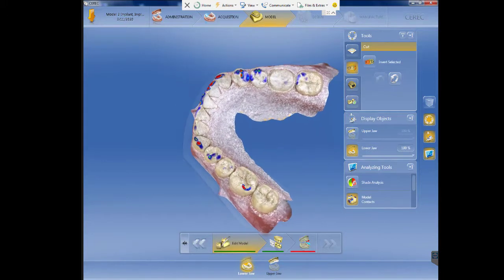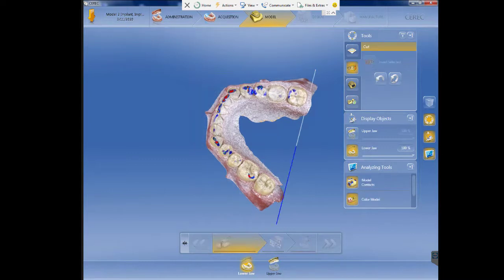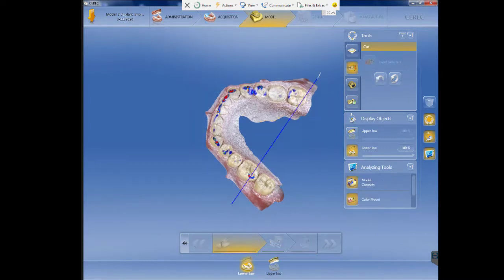After that we will prepare the heels of the models in case that we want to print vertically later on.